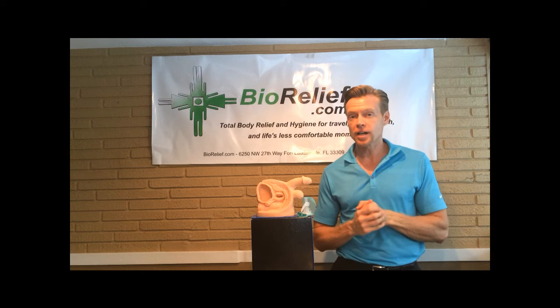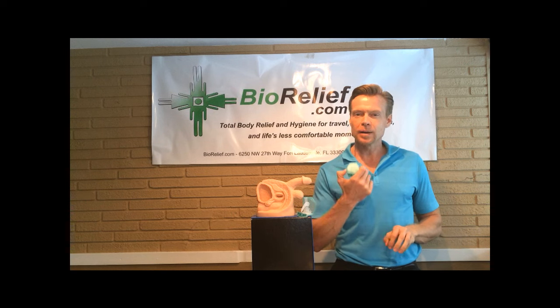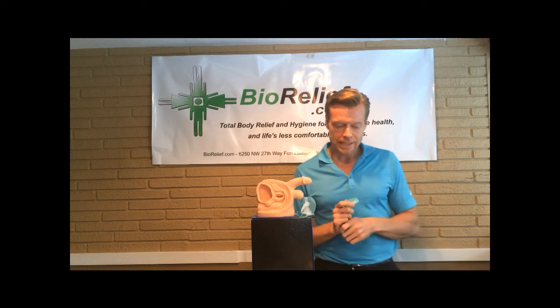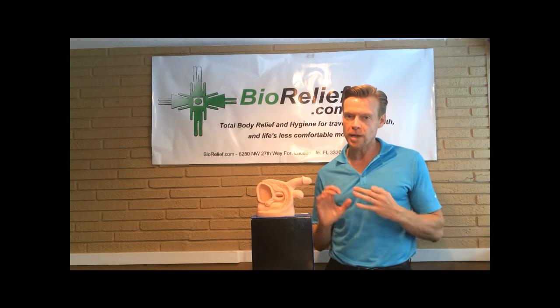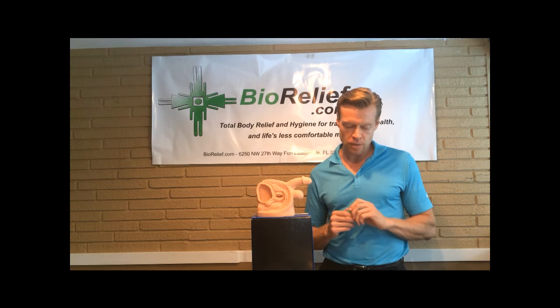Thank you, Jeff. So we want to talk about how to get the best results, the most success with a condom catheter. This is part one of a two-part video series. I have chosen the Coloplast Conveen Optima condom catheter because you definitely want the best catheter you can get so you do not have leakage or the condom catheter falling off, and this actually won the award for medical excellence. We're going to run through tips and tricks that are very helpful to make sure you get the best possible success with a condom catheter.